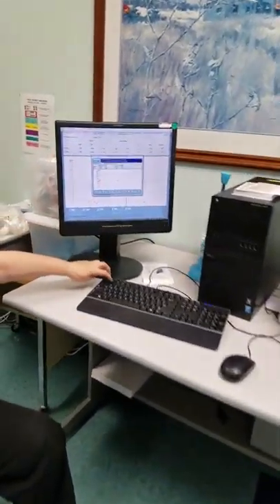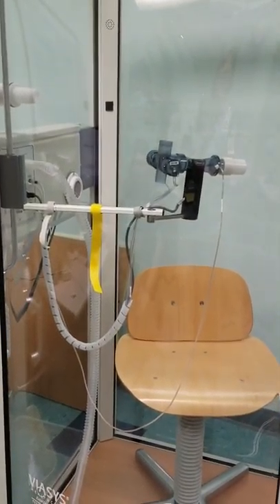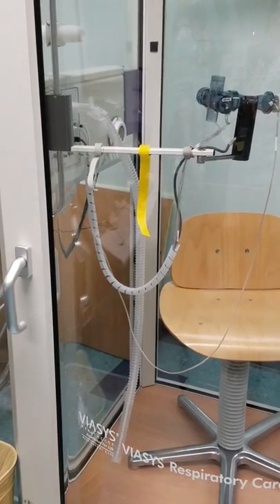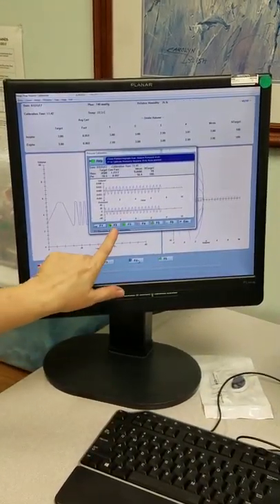Hit F1. What happens is it's got a rotary sine wave pump, which I think is a fancy way of saying a piston that drives back and forth to change pressures. And it goes and goes and goes like this. And are you done when it's done? No — I think you know that by now.